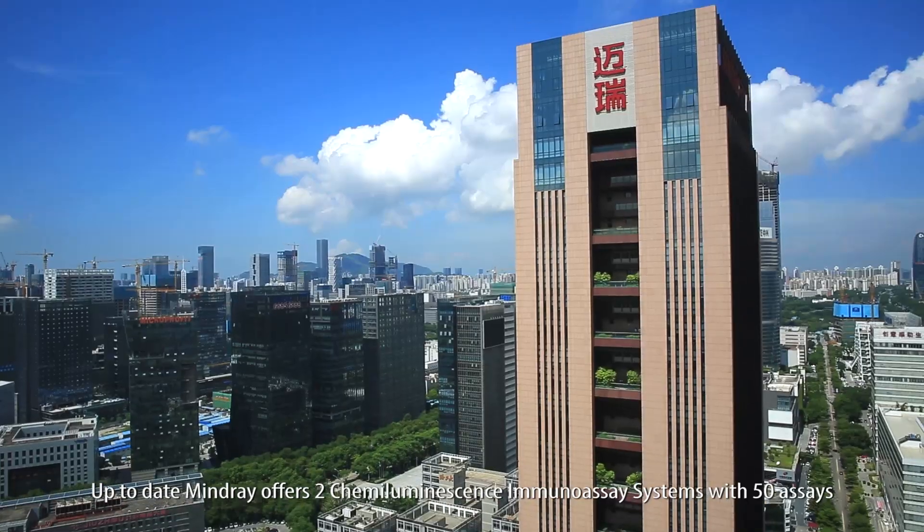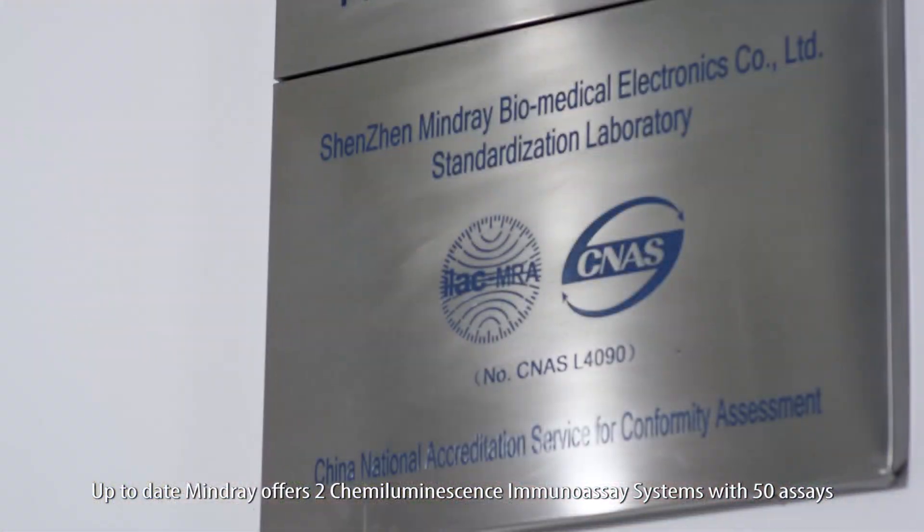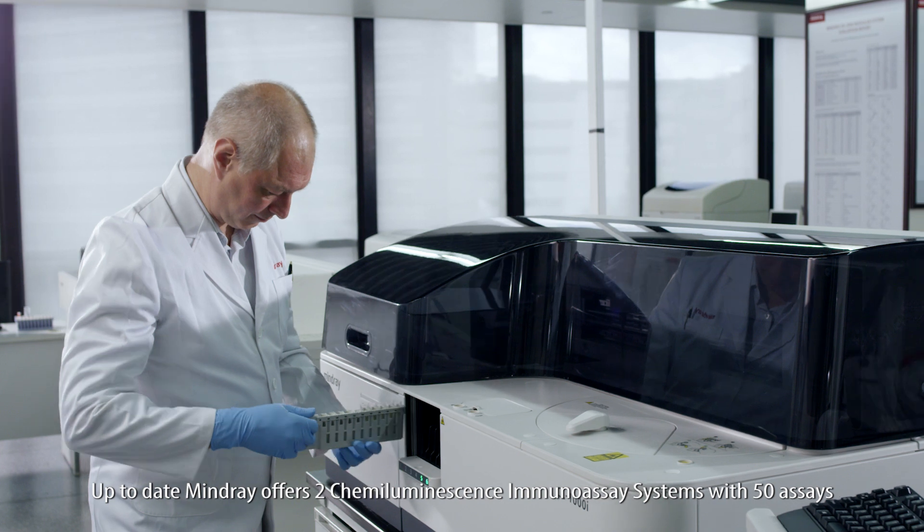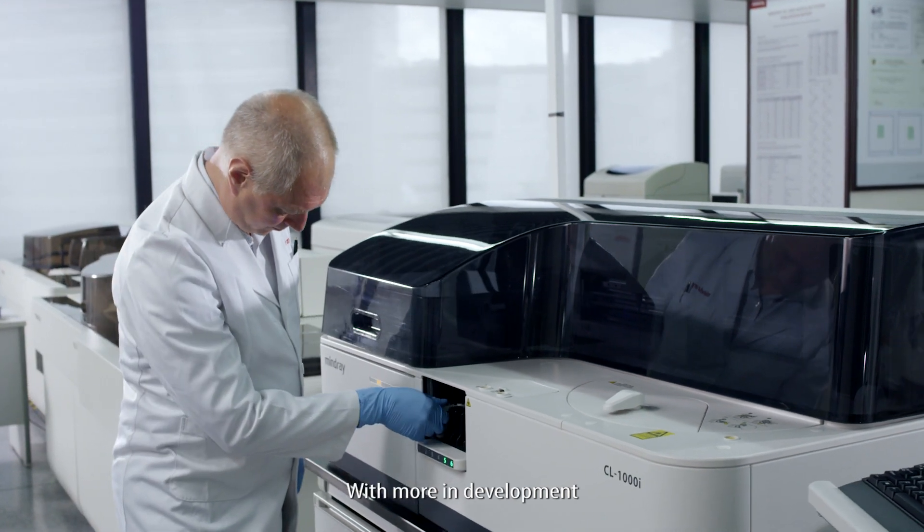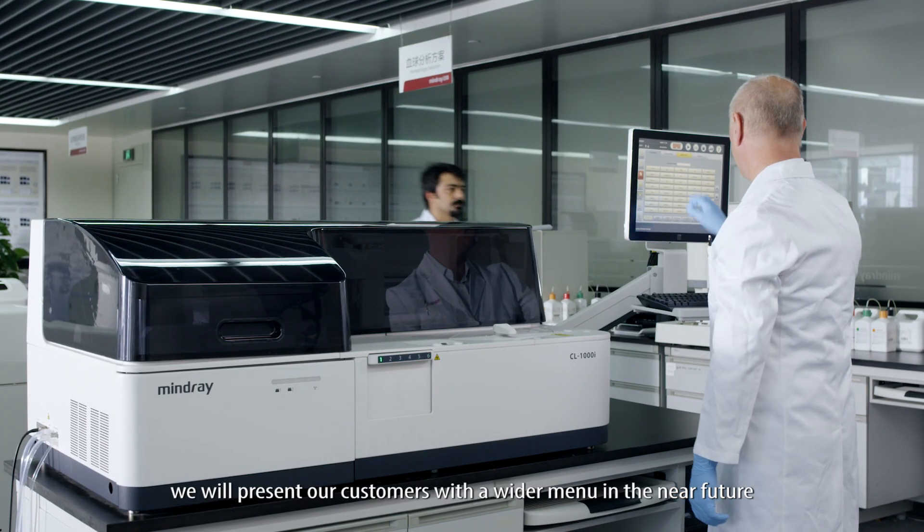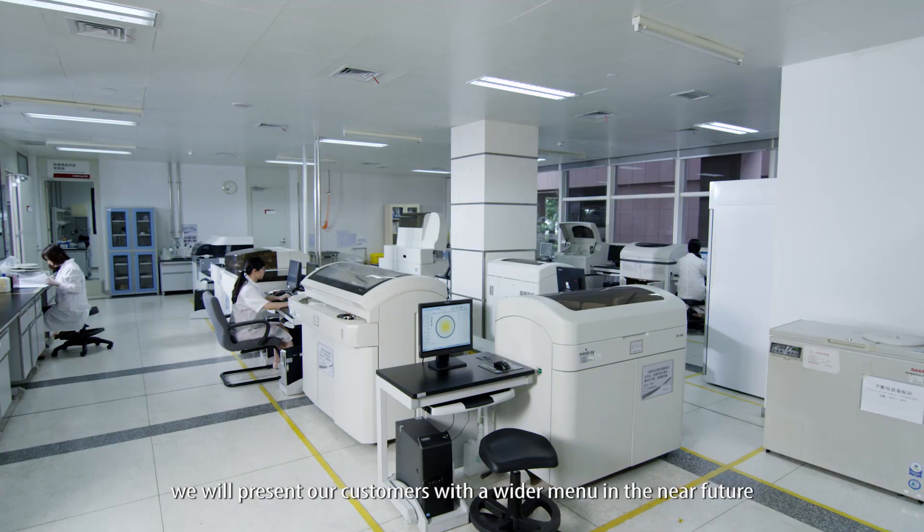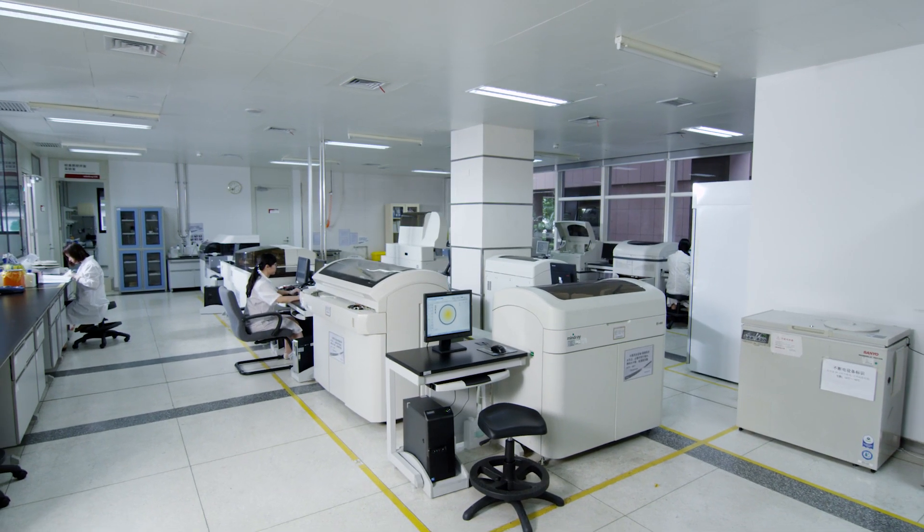Up-to-date MindRay offers two chemiluminescence immuno-assay systems with 50 assays. With more in development, we will present our customers with a wider menu in the near future.